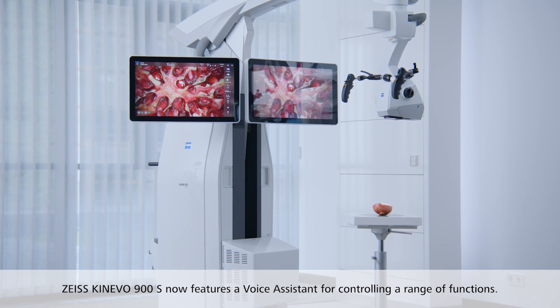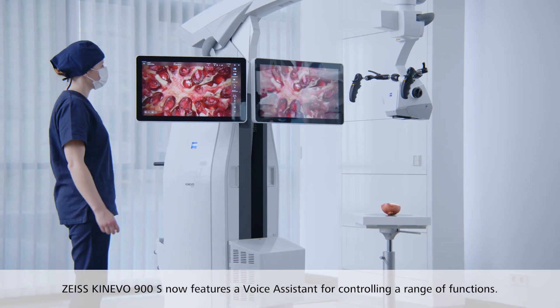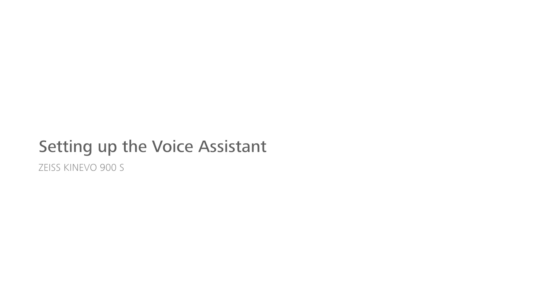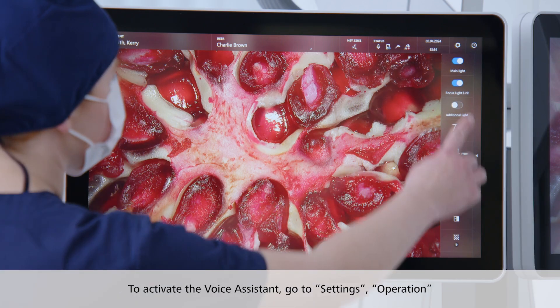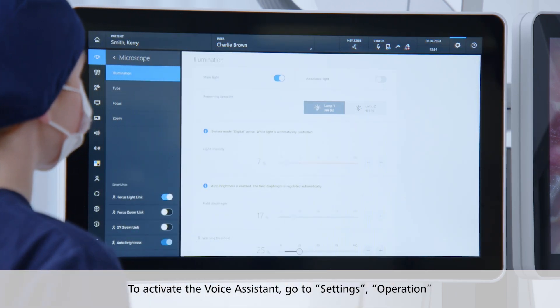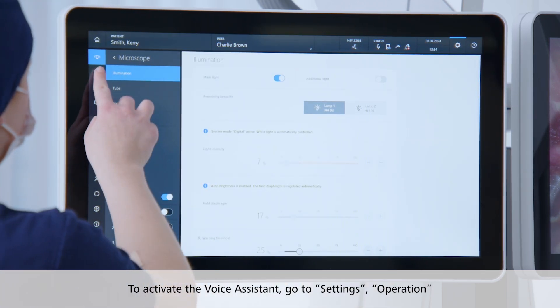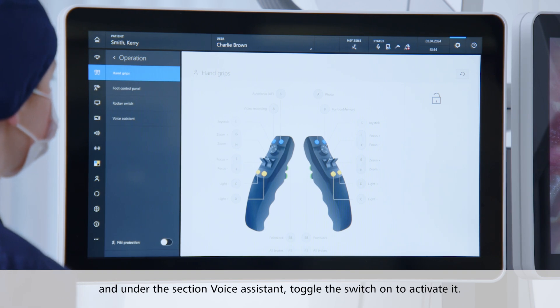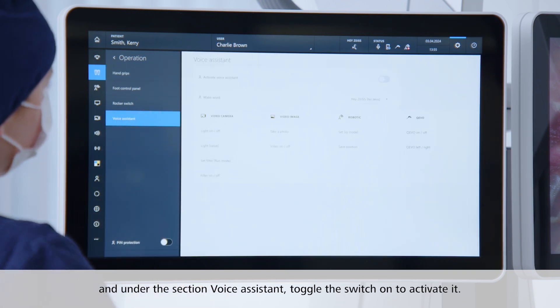The Zeiss Kinevo 900S now features a voice assistant for controlling a range of functions. To activate the voice assistant, go to Settings, then Operation, and under the section Voice Assistant, toggle the switch on to activate it.